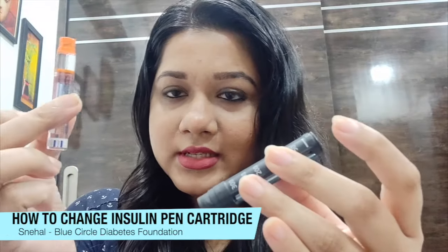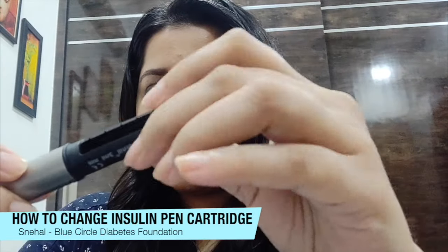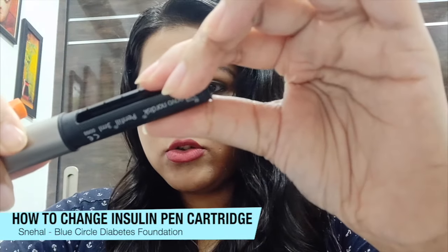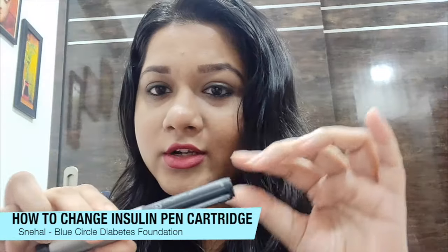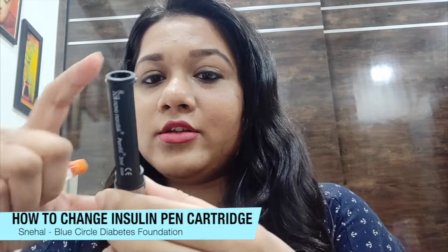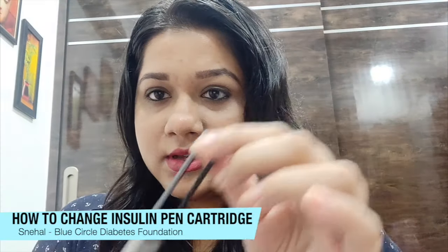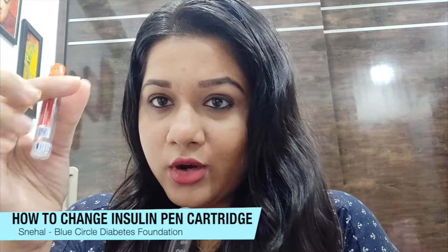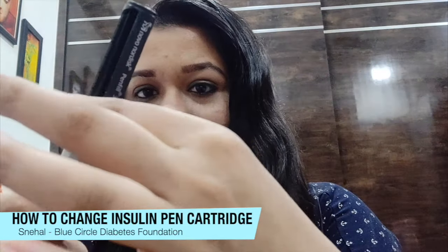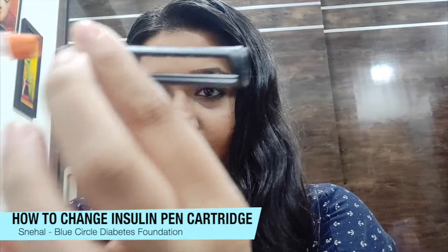Your cartridge is inside. You can just turn it, and then put it back in place and screw it back — you will hear a small click sound which ensures the piece on top is firmly secured. The same way, when you're trying to add a new cartridge, just twist it, it opens up, and add your cartridge in place.